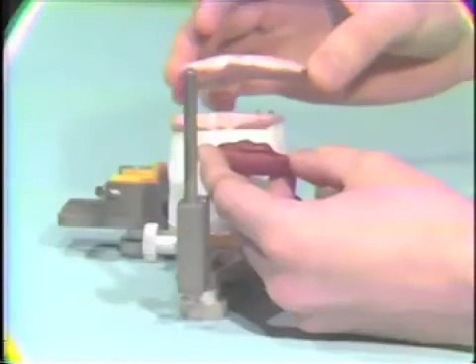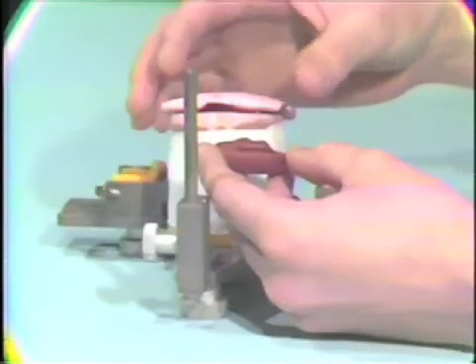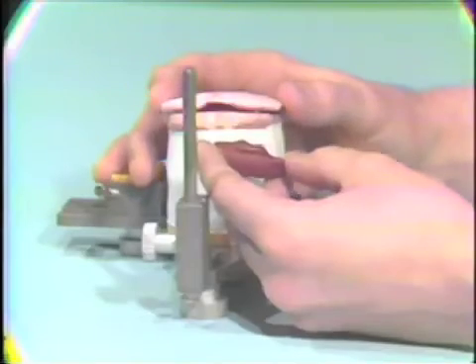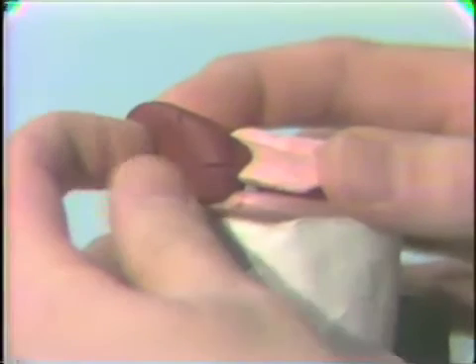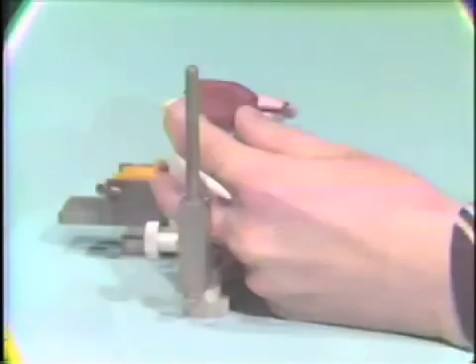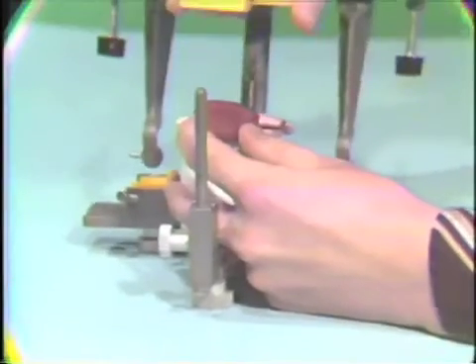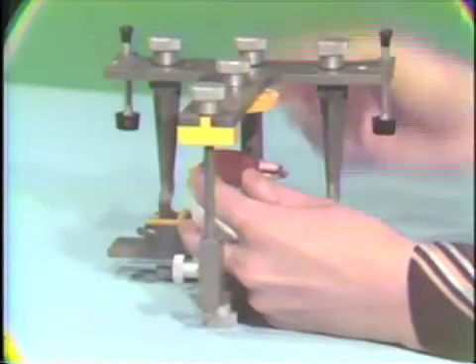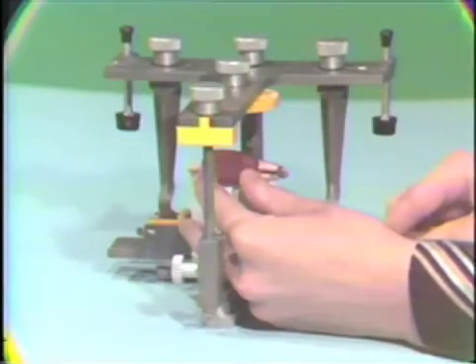So all we do is we now put the mandibular clutch over the cutter studs. So the studs are at the apex of our stereographic recordings. We attach the compound guide to assure that they're in the proper position for mounting. And now we can place the mandibular member of the articulator over this and proceed to mount the mandibular clutch.